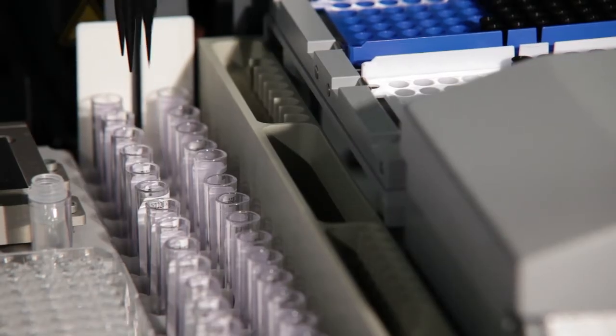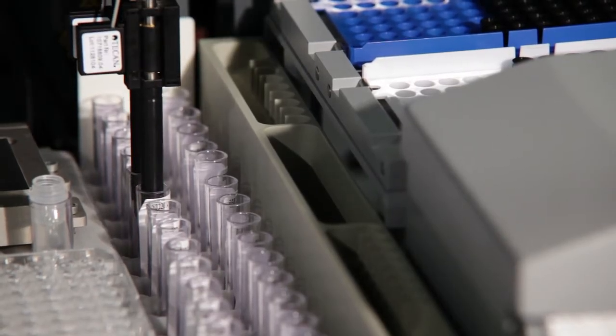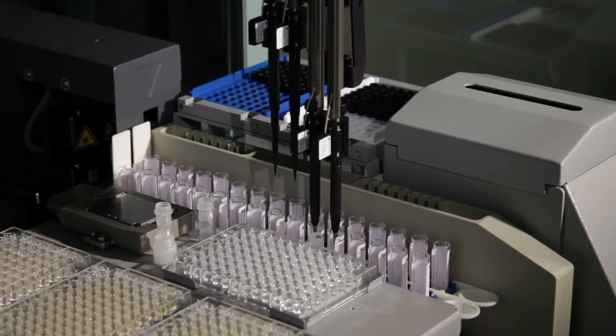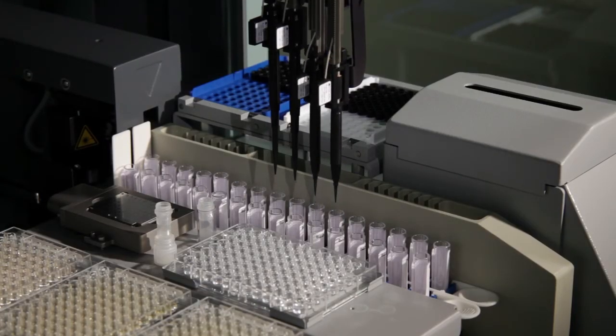Up to 32 samples can be completed by a single run. This means you can handle up to 100 tests per hour.